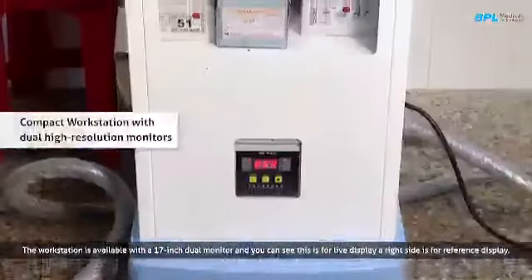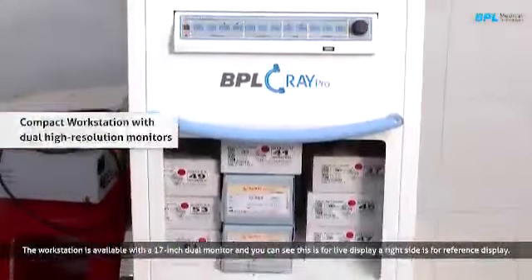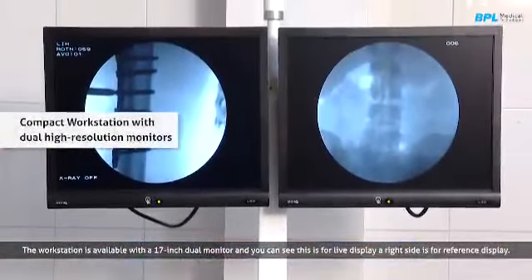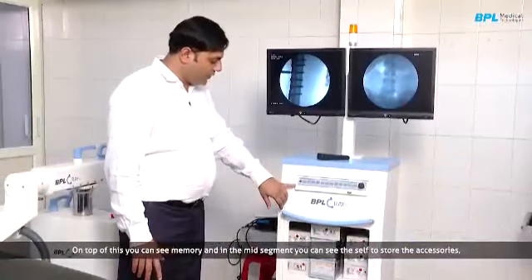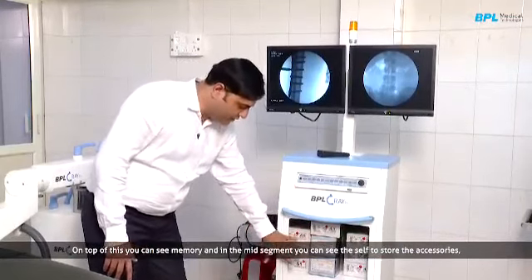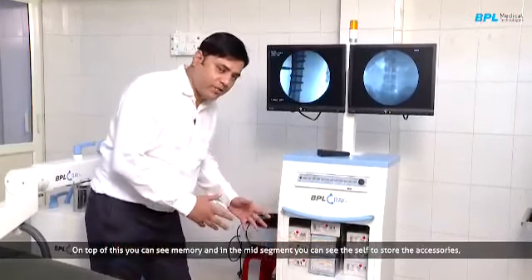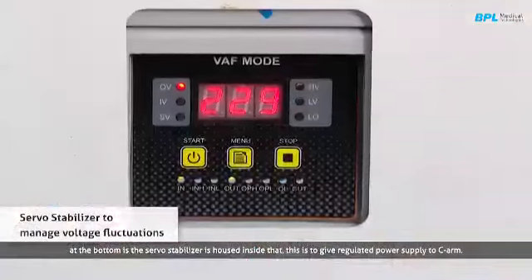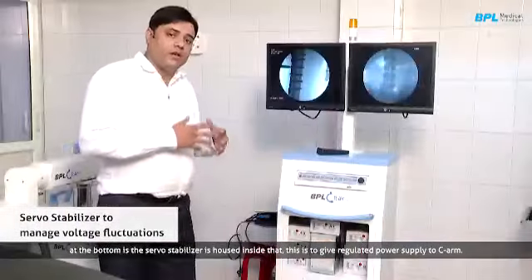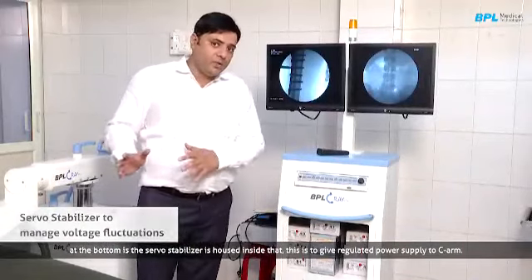It's available with a 17-inch dual monitor, and you can see this is for live display and the right side is for reference display. And on top of this you can see memory, and at the mid segment you can see this is the shelf to store the accessories, and on the bottom side a servo stabilizer is housed inside. This is just to give a regulated power supply to the C-arm.